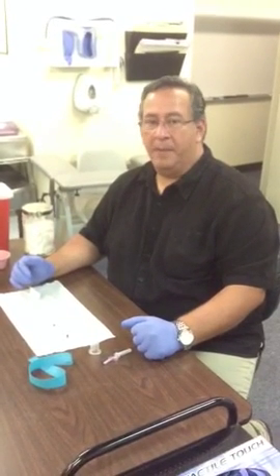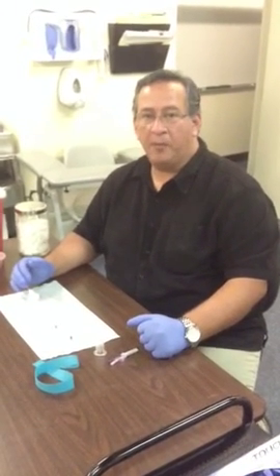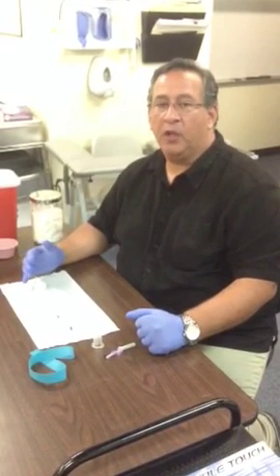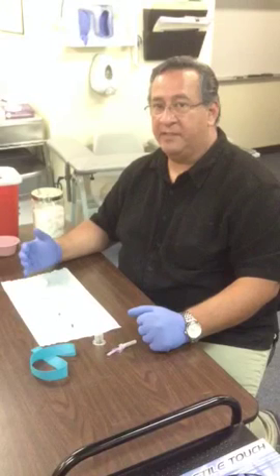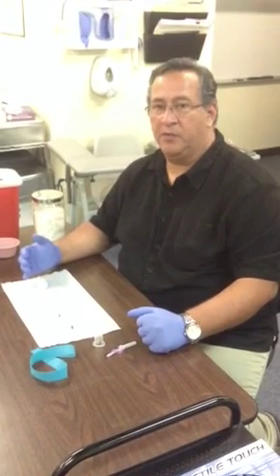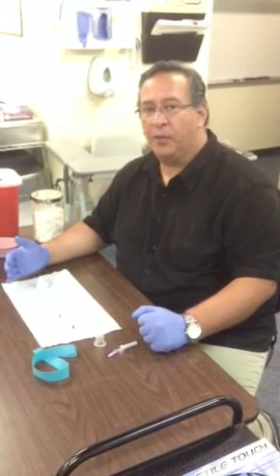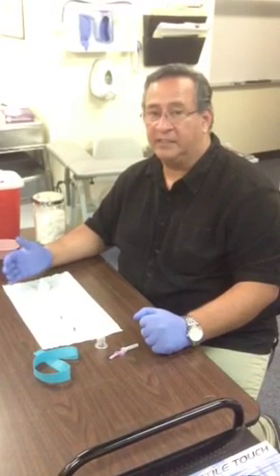In this video, I want to talk about needle safety and proper needle disposal. It's very important to us at Liberty Career College that everyone is safe when it comes to disposing of and using needles. We don't want to see people handling needles in an unsafe way, which might lead to an accidental needle stick.